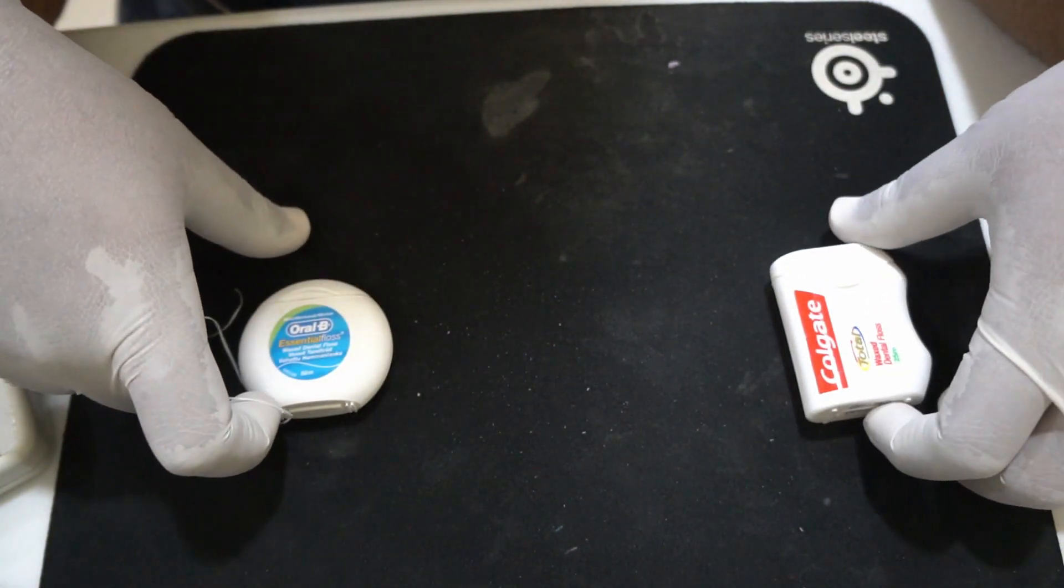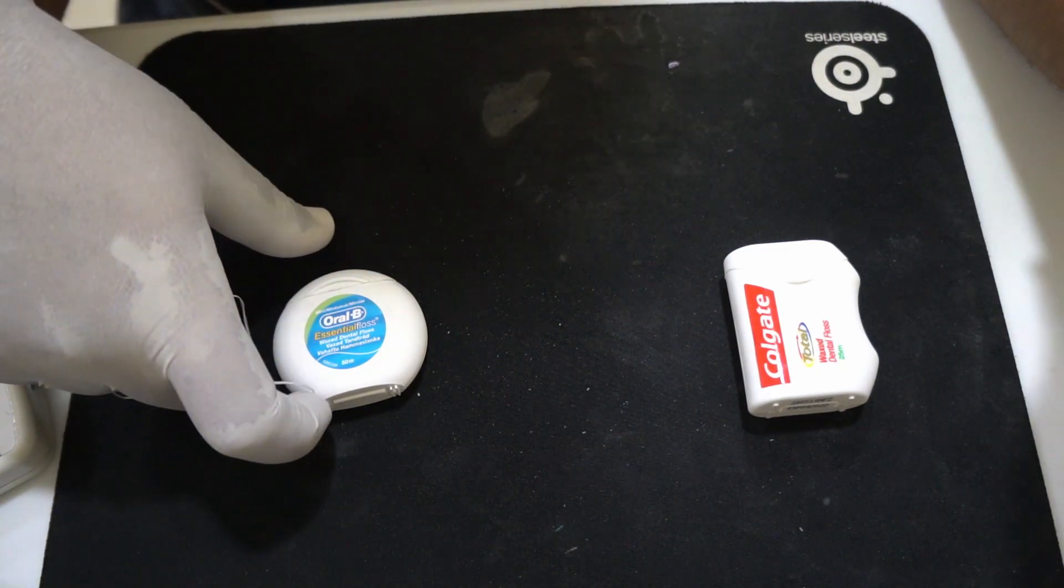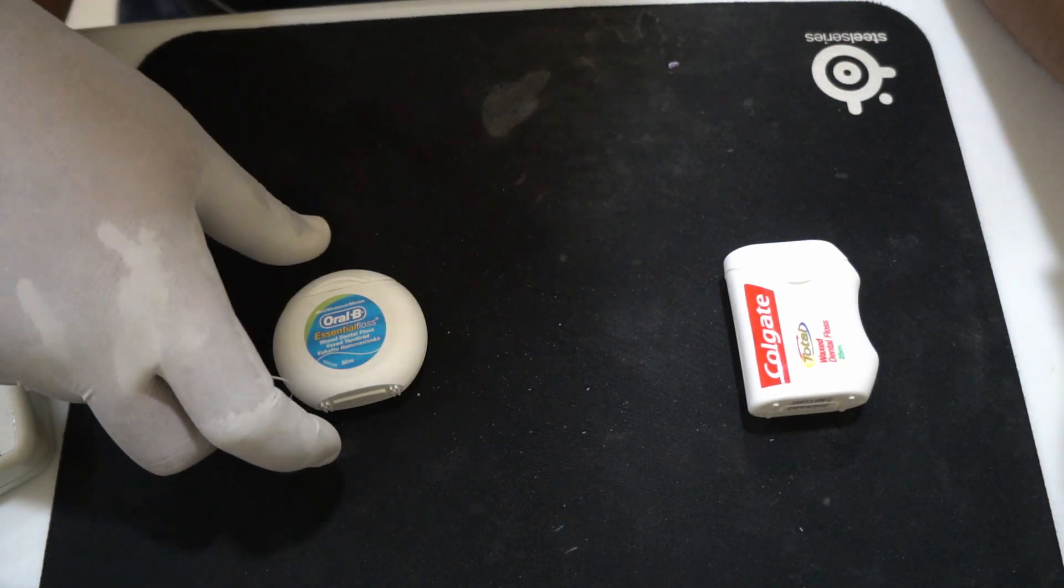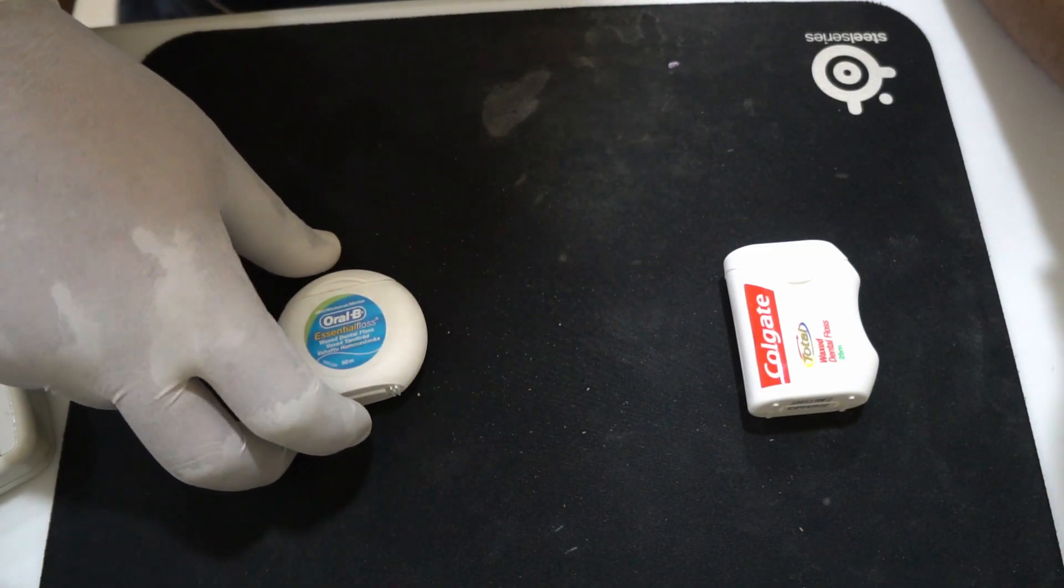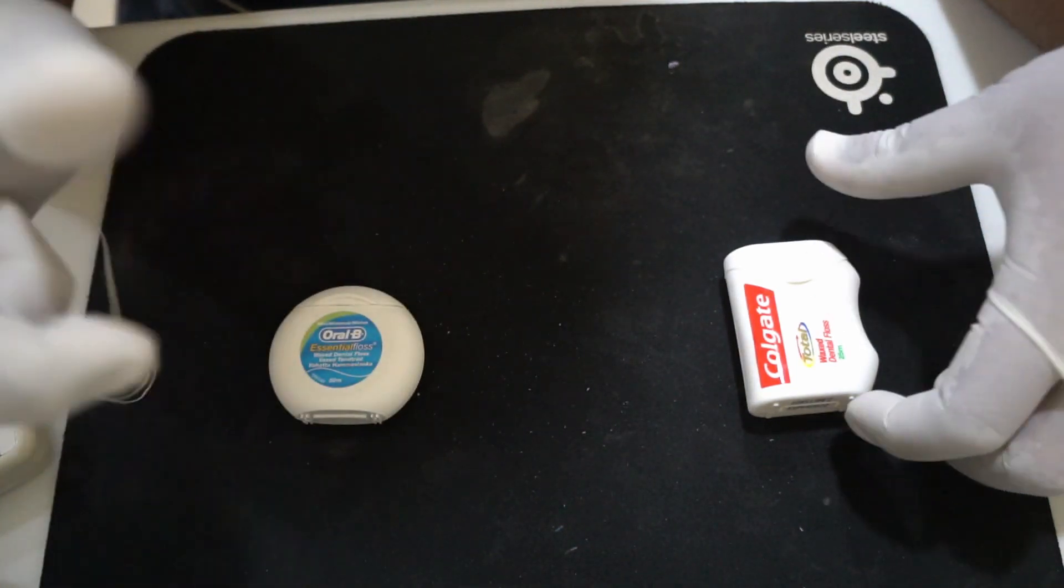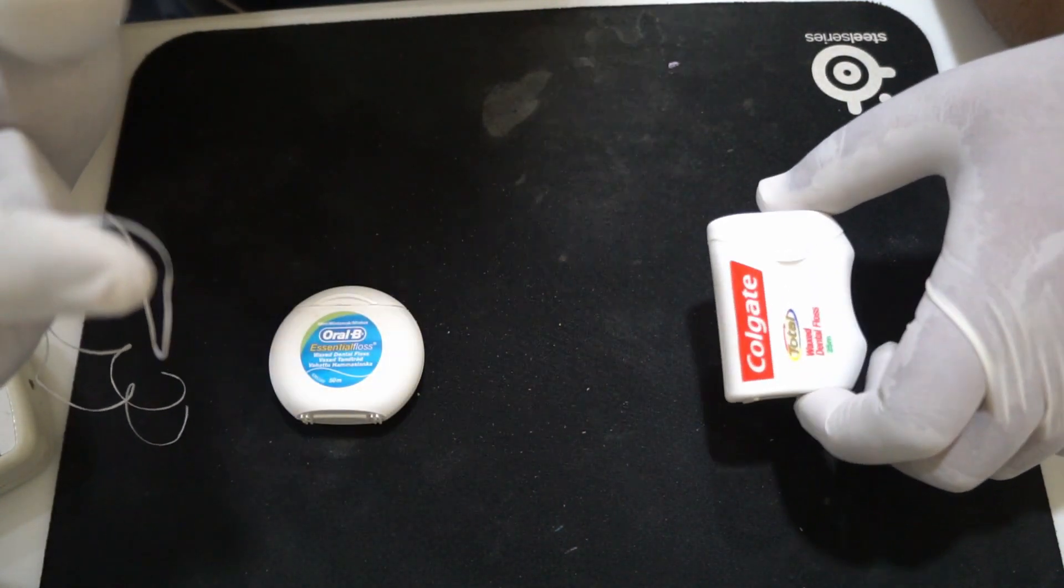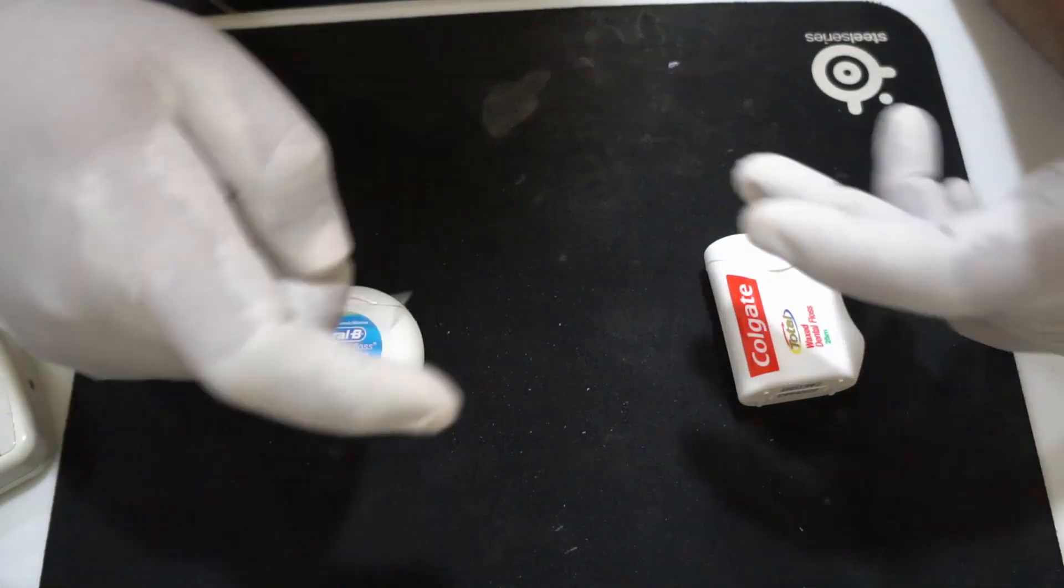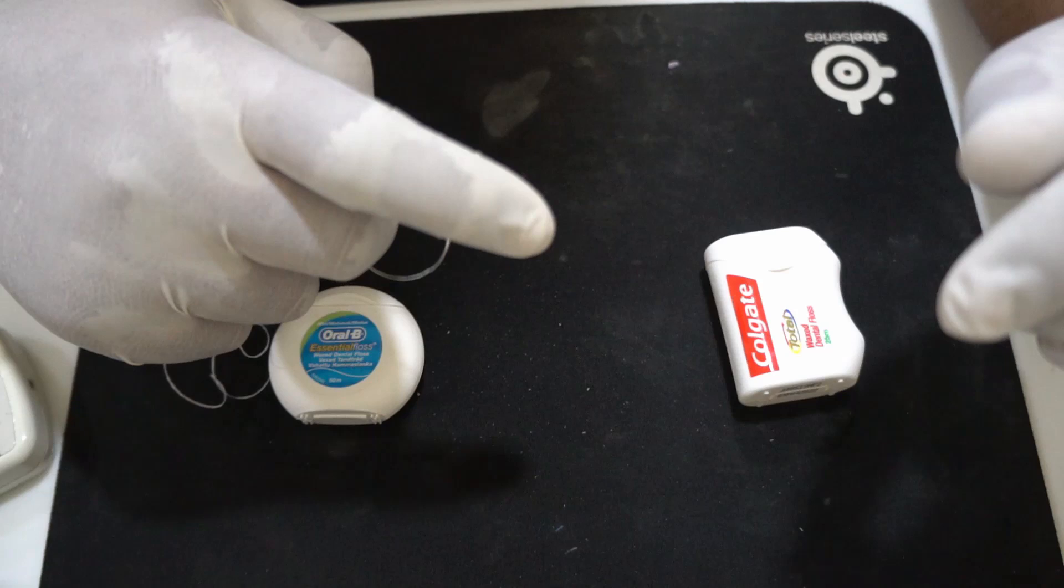Regarding the brand of floss that you should use, basically you can use any floss. I'm not very particular about which floss I use. As of now I have two brands of floss available with me. One is the Oral-B essential floss and the Colgate waxed dental floss. Both these floss brands work well for your ligature.